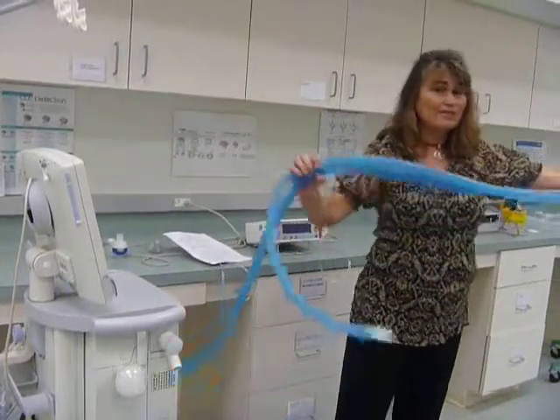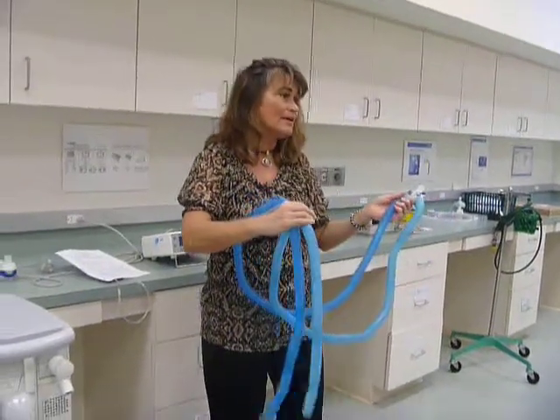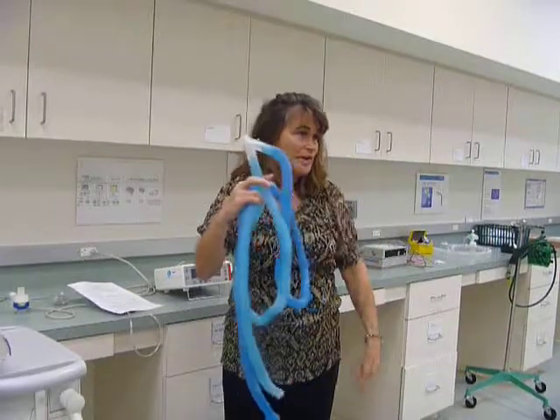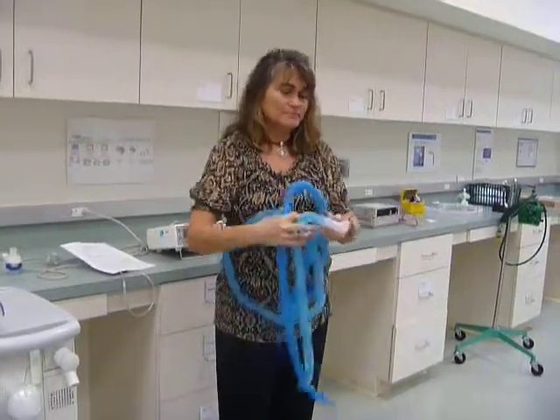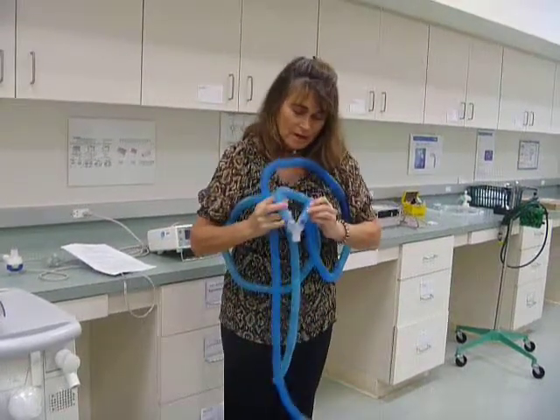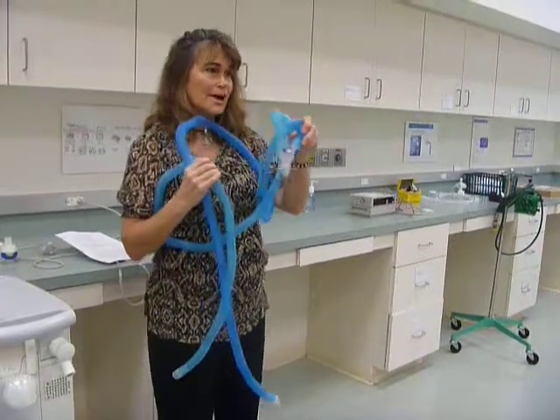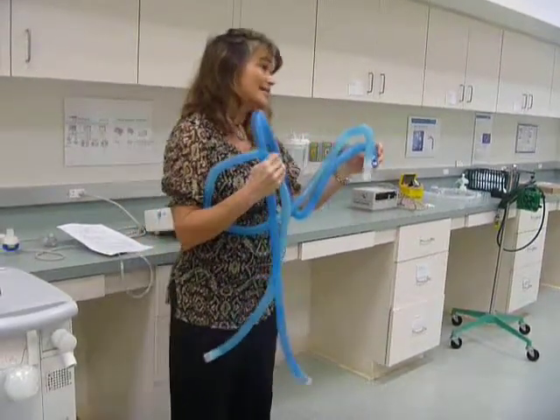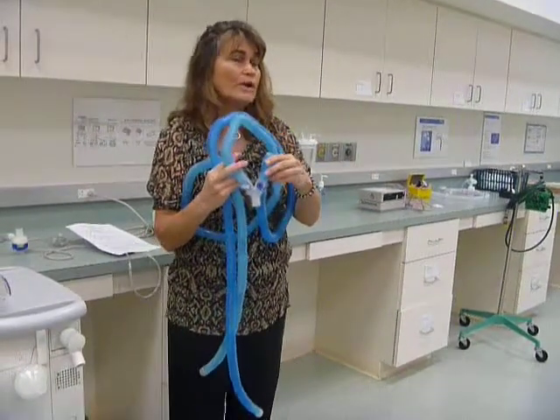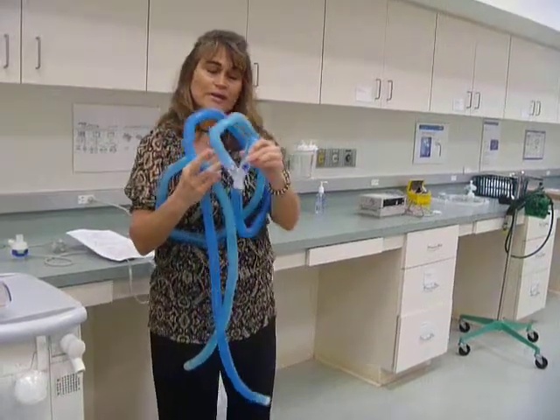All right, so we have 2 tubings. One is inspiratory and one is expiratory, meaning that when the patient exhales, instead of the air going through the same tubing, it's going to go through the other side of the tubing. All right, so looking at the circuit, does this plastic piece look like a letter to you? Does it look like the letter Y? And it's called a Y. Sometimes it's spelled out W-Y-E, you'll see it in your textbook, or it just shows like a capital Y. So that's what it's talking about, this part of the circuit.